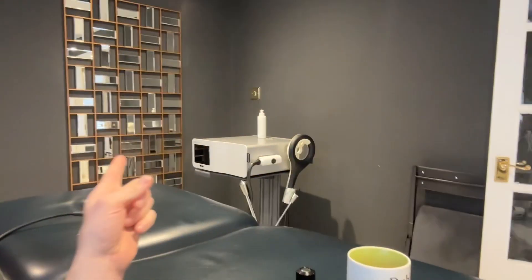If you've also got the EMTT machine, that's a great addition. With a frozen shoulder I start off with that first, then finish with it. So you do 4,000 pulses on level 8 at 8 hertz before you start the shockwave treatment, then do it again after just to settle and calm everything down.